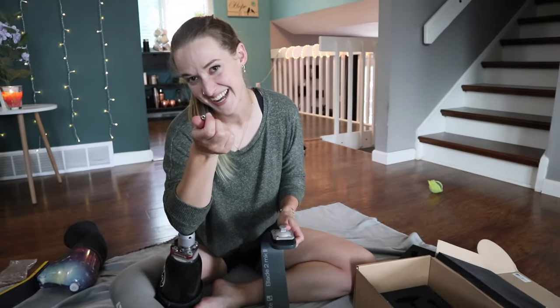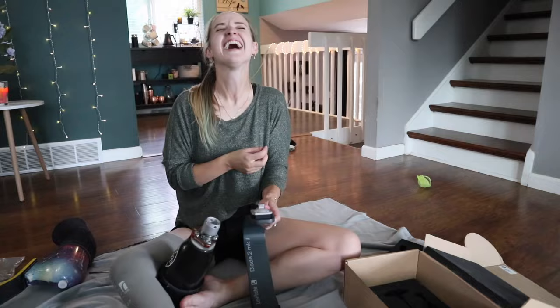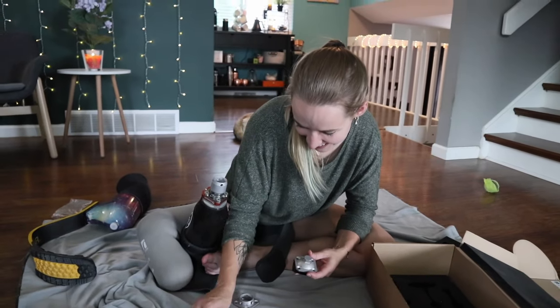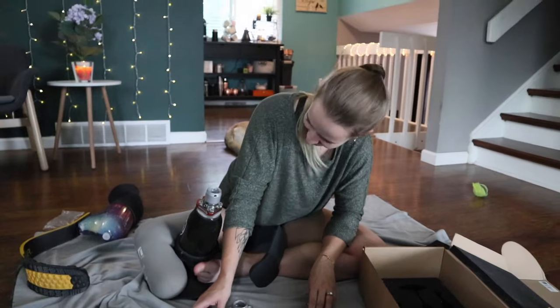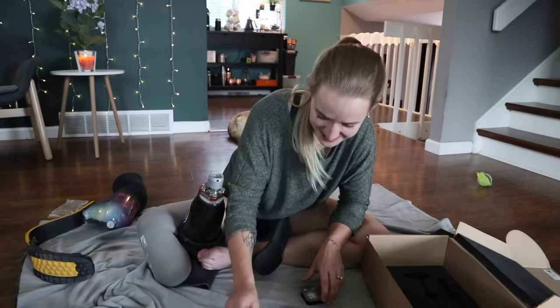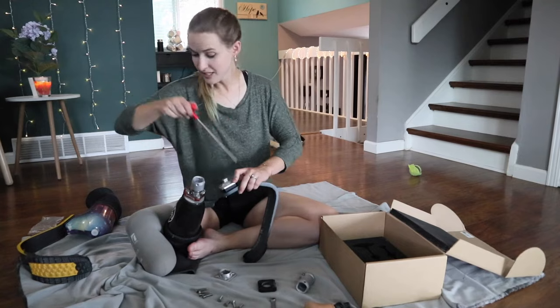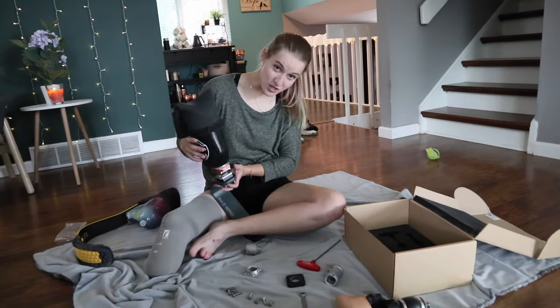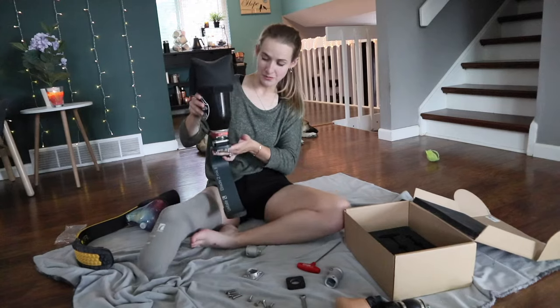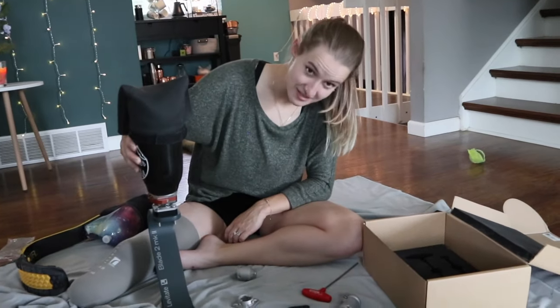Washer things — is that what these are? Do you know what these are, Lori? It's a nut. I think that just illustrates how much I know. I will say, on a completely superficial note, I really like the way this looks — it's very sleek. There's no way it's going to be that simple, but in theory it should be that simple.